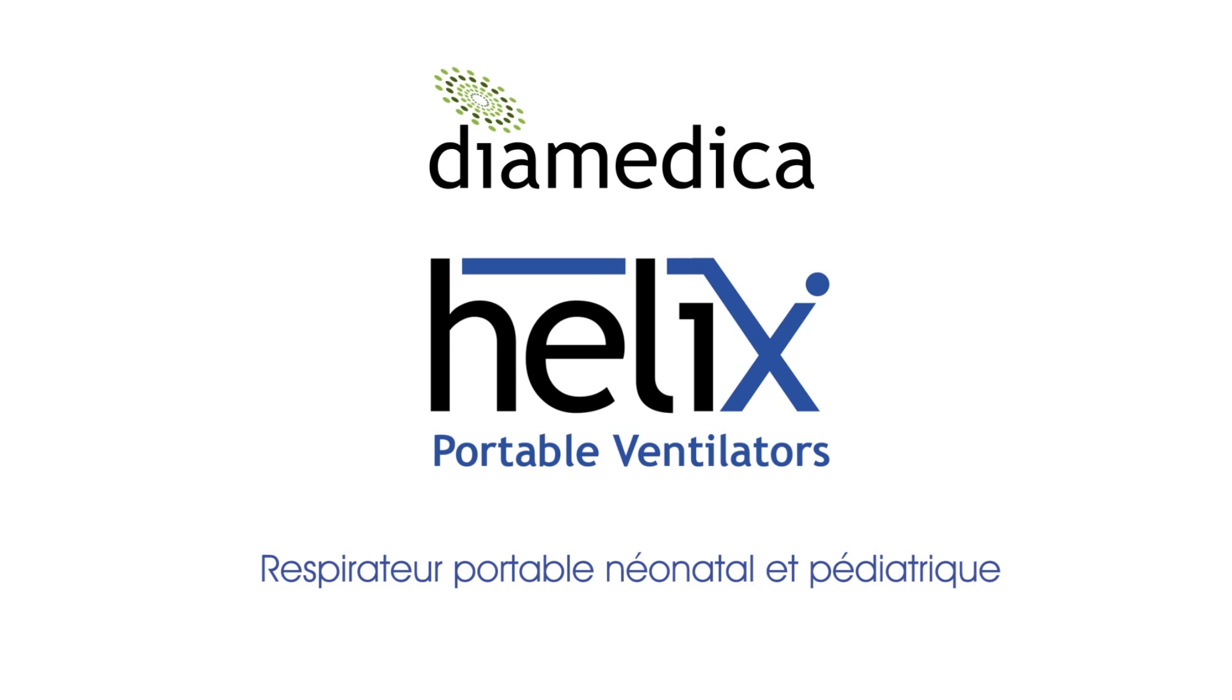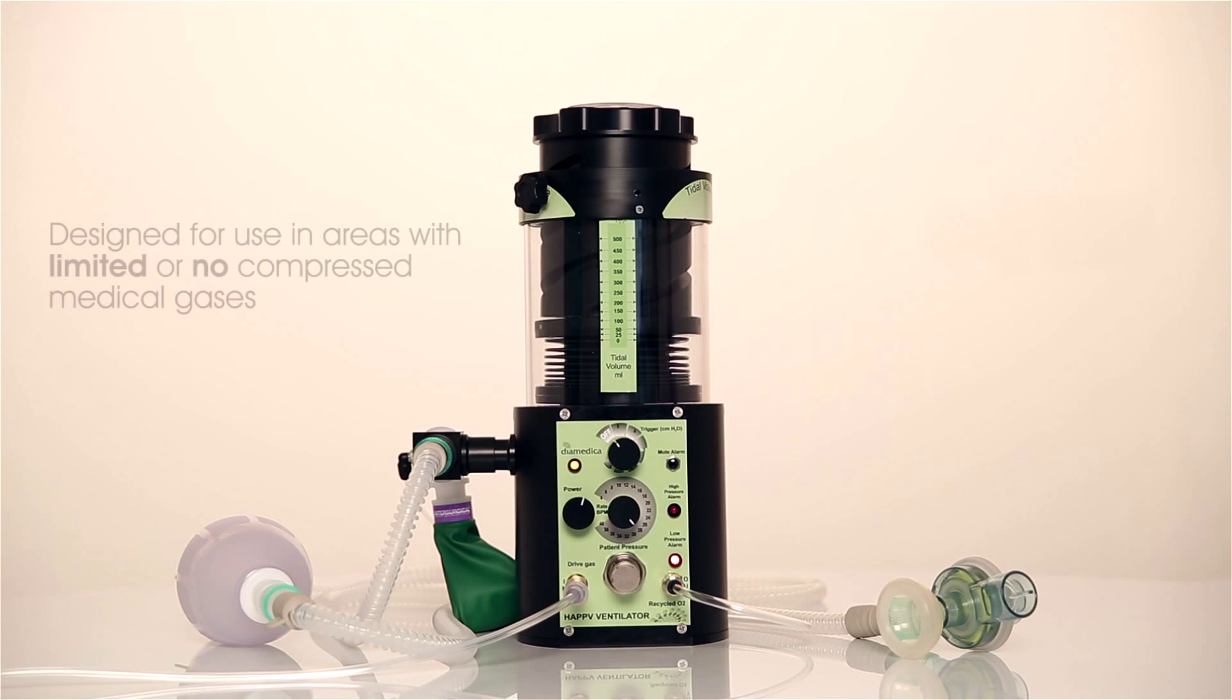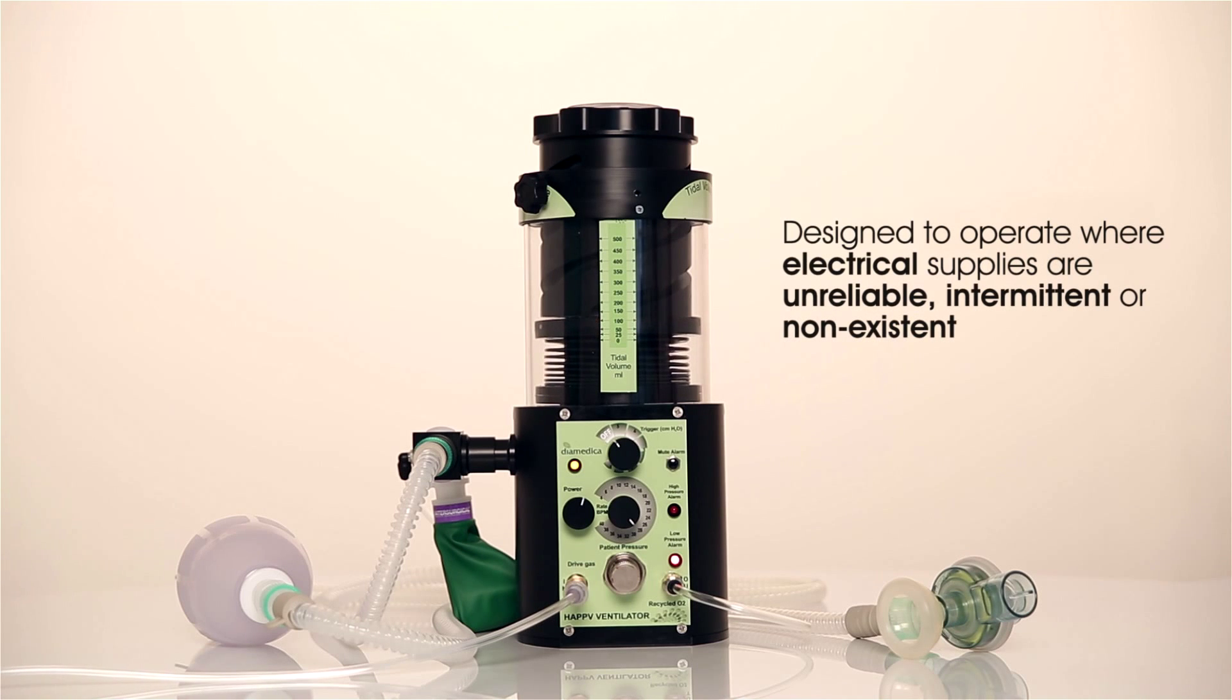The Helix Pediatric and Neonate Portable Ventilator is designed for use in areas where there are limited or no compressed medical gases, and where electrical supplies are unreliable, intermittent or non-existent.